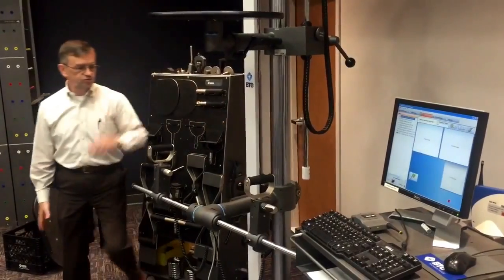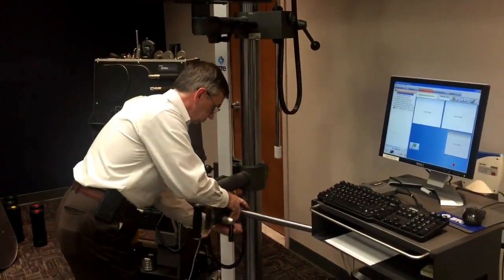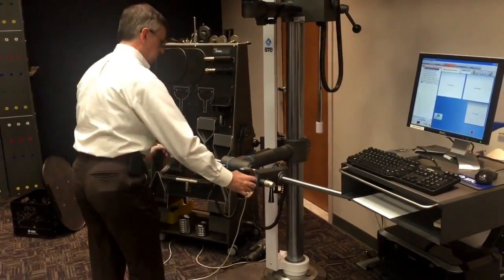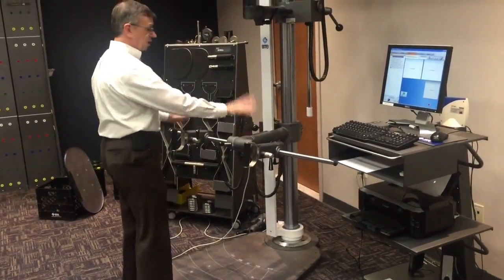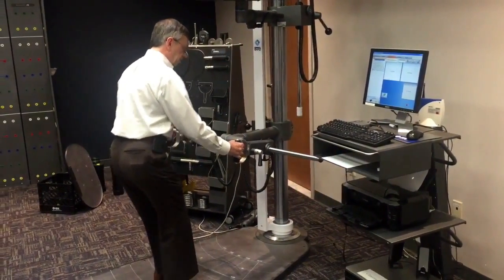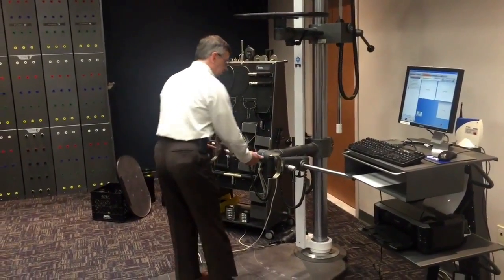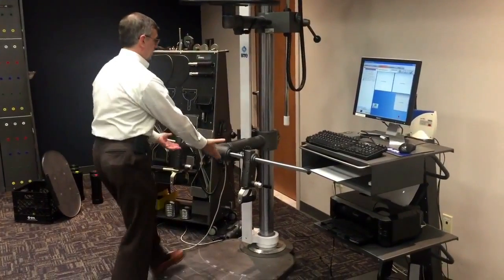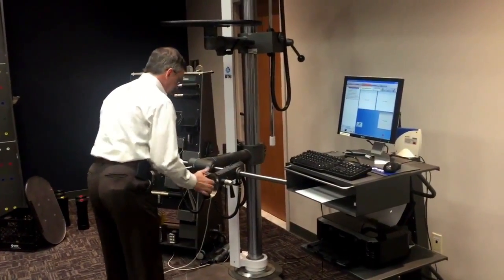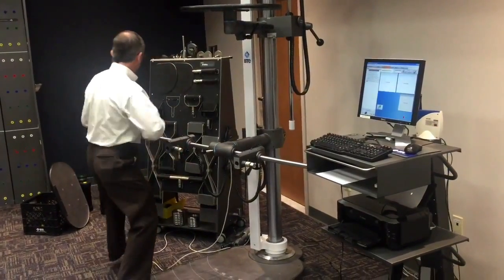Secure this in place so that it doesn't move, and now we've got a broad spread. Or if we tip this down and bring these in a little bit closer, it's a more comfortable setting. We can use this for pulling or for pushing, and we're measuring right and left strength difference — so we can see if a person is favoring the right side versus the left side. On a normal healthy person, you'd expect a pretty even distribution between right and left. Somebody with an injury, you might see that they are favoring one side. This can even be pointed down — we raise this up high, bring it all the way to the top and use it for pulling down. With these various positioning options, you're really limited only by your imagination when it comes to duplicating various job tasks.